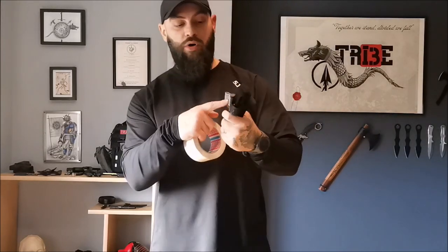Now I will show you a drill you can implement in your training that will push you a little bit more. What you need is a training tourniquet. This one is a normal tourniquet, but I keep it only for training — I recommend you mark it with 'training' written on it so you use it only for training and don't put it in your daily carry medical trauma bag, because if you needed it and it has lost its characteristics, you will have a problem. So: a tourniquet and some duct tape.